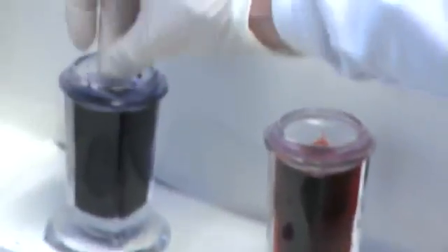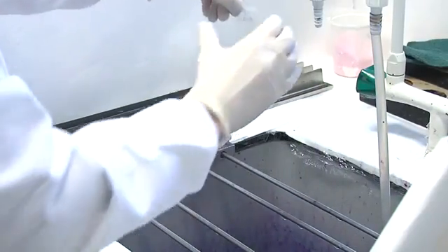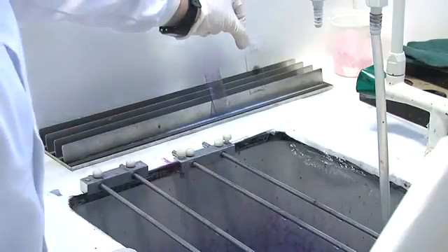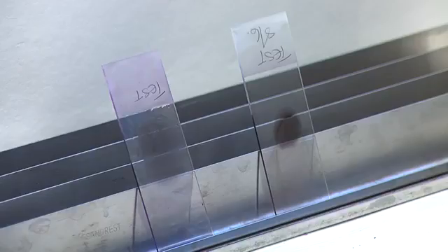Performing the 3-second dips in stain and water, then again place it upright in the rack to dry so all the outside of the red cells can come down and leave a nice clear area to look at.